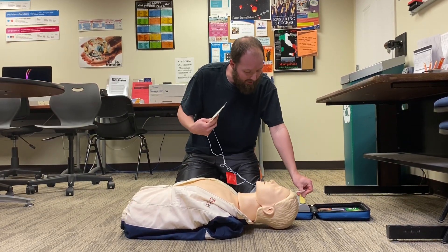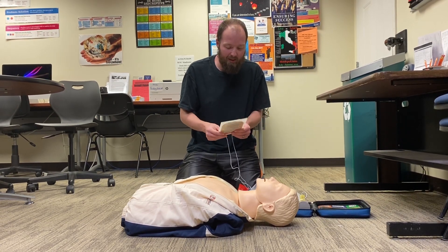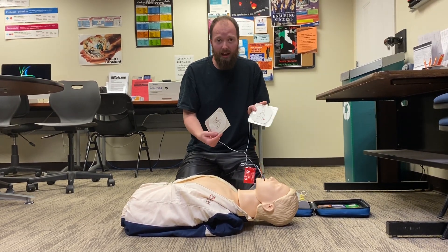Some will have you plug in connector pads — there's a plug, very simple, easy to do. Some will already have them connected, and they'll instruct you to go ahead and put them on.